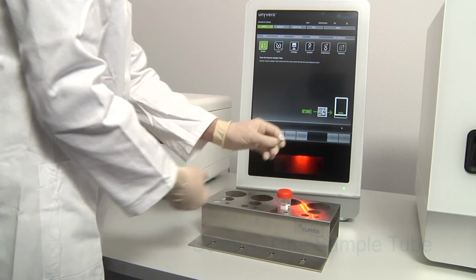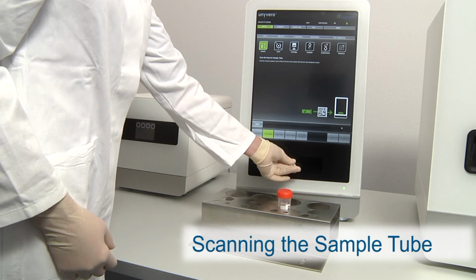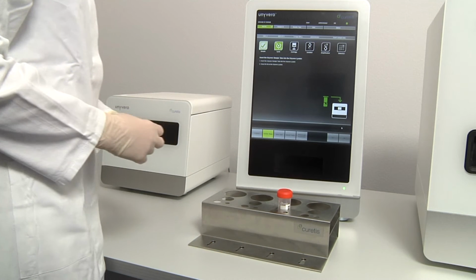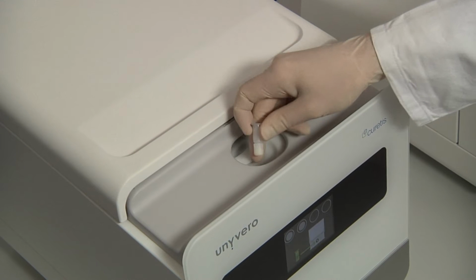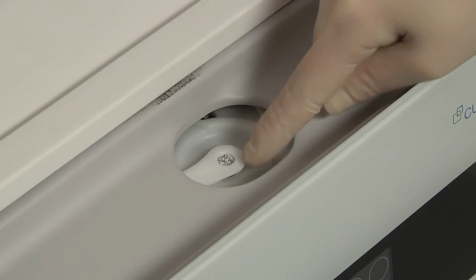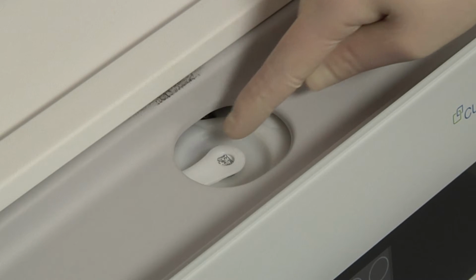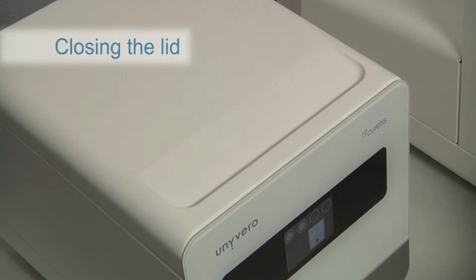Now you will need to scan in the Unyvero sample tube. With the now following scanning of the sample tube, the lysator will open automatically. Insert the sample tube into the lysator by pushing the protective lid to the side. Make sure the protective lid is completely covering the sample tube. The lysis process will start automatically upon manually closing the lid of the lysator.